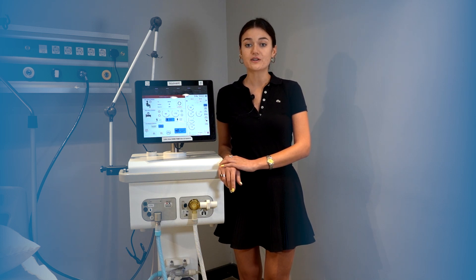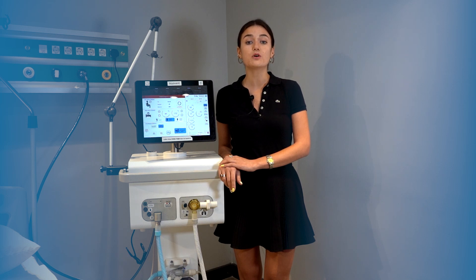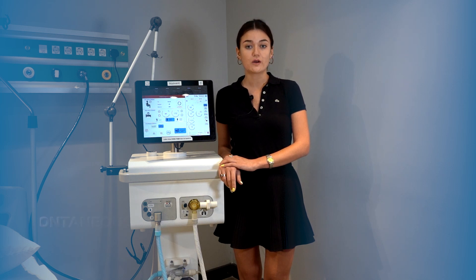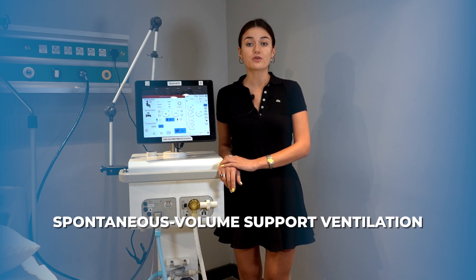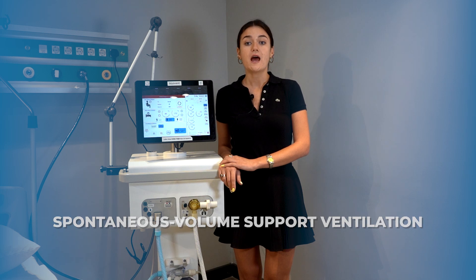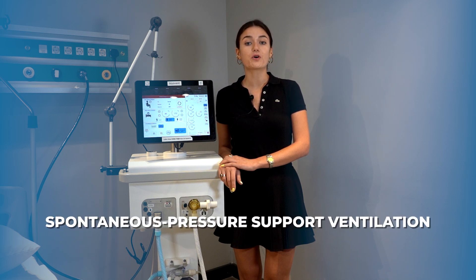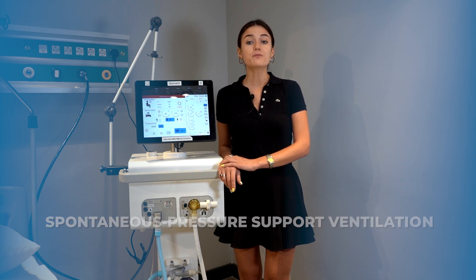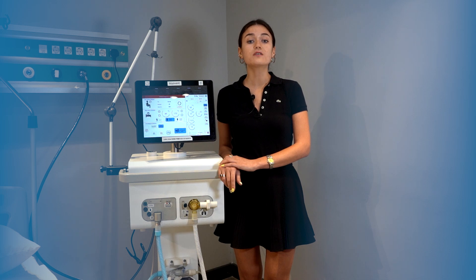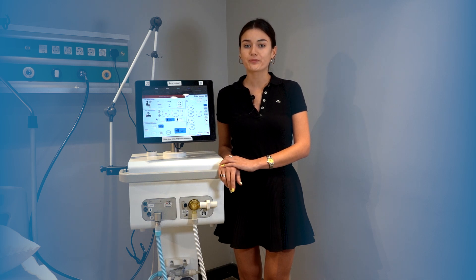The BioVent ventilator device includes the following spontaneous modes: spontaneous volume support ventilation and spontaneous pressure support ventilation, where patient breaths are supported by pressure or volume.